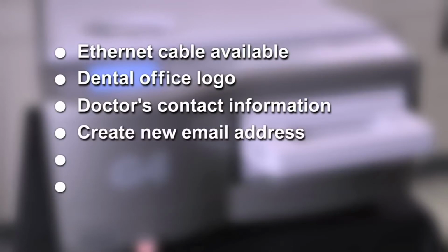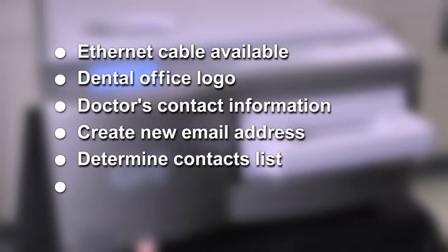Create a new email address from Gmail, Yahoo, Hotmail, MSN, etc. We will talk more about where and how this email account will be used later, but this email will be your G4 unit's email. Determine who will be receiving emails from the G4 and which emails they will be receiving. Each email address can be designated to receive email for every cycle or only when there is a cycle fault.